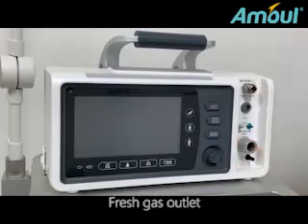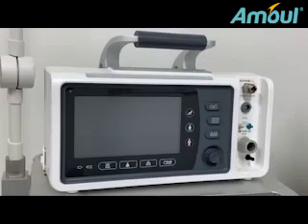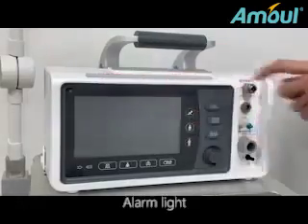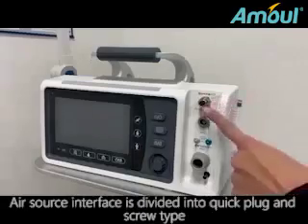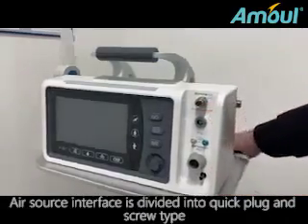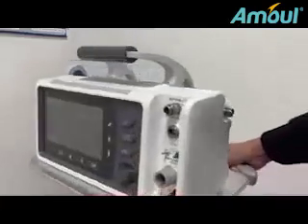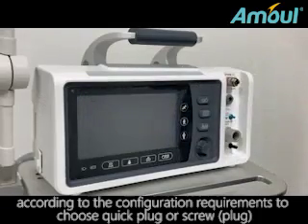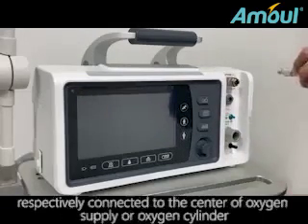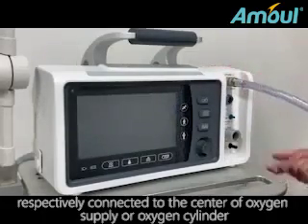Fresh gas outlet. PEEP gas interface. Alarm light. The air source interface is divided into quick plug and screw type. According to the configuration requirements, choose quick plug or screw plug, respectively connected to the center of oxygen supply or oxygen cylinder.